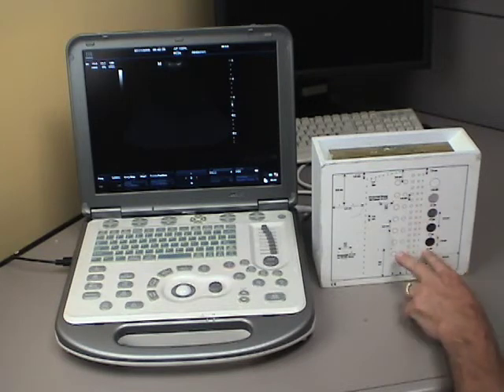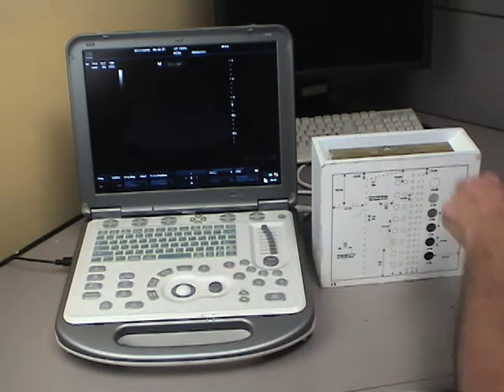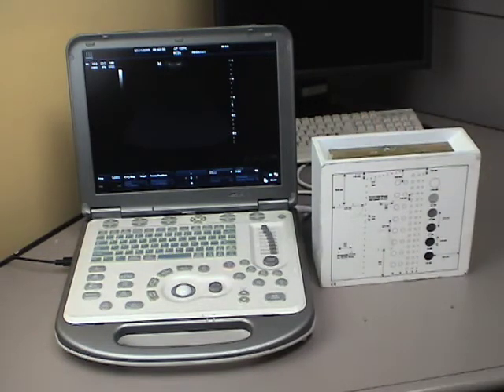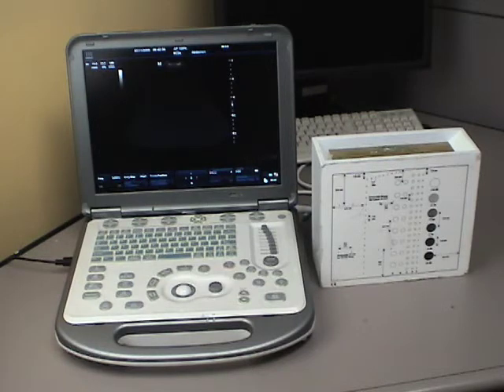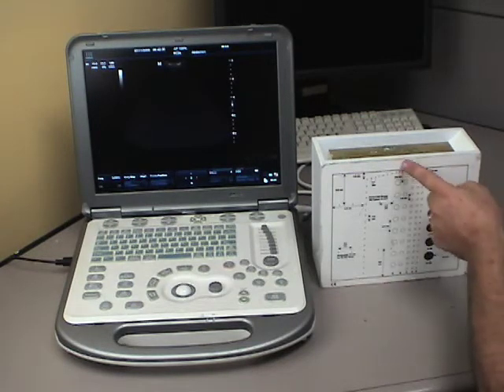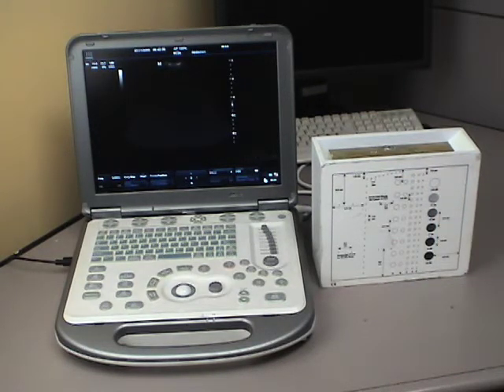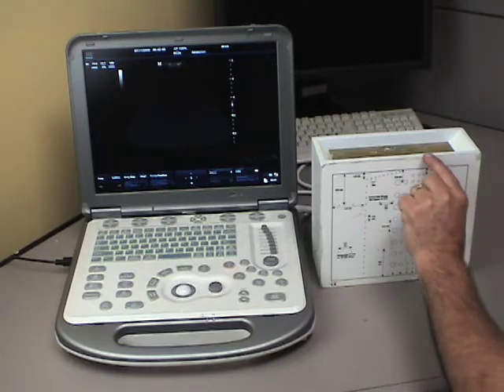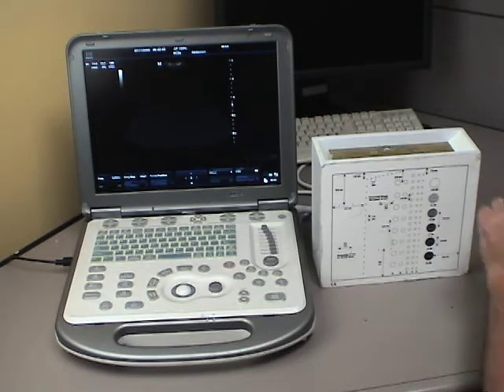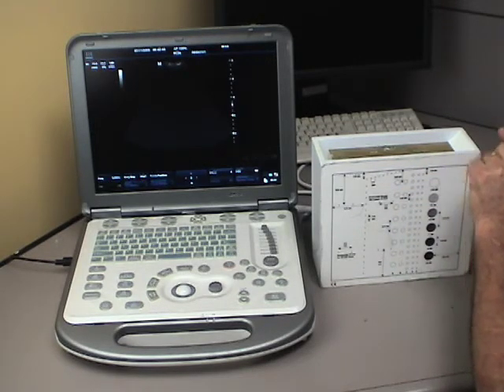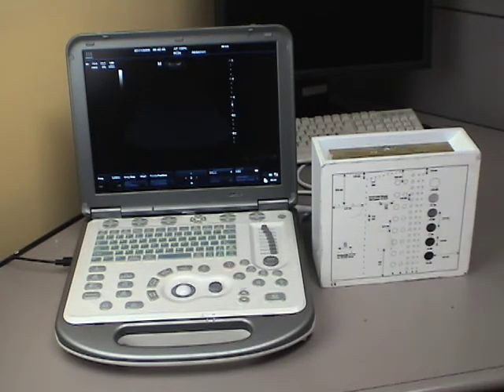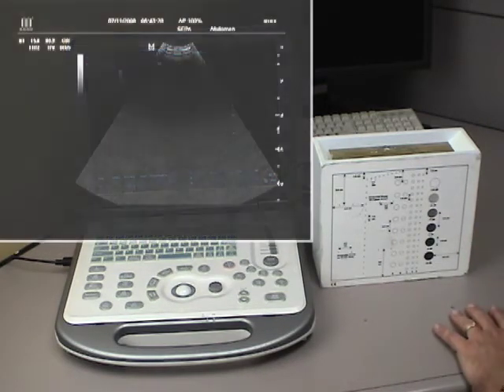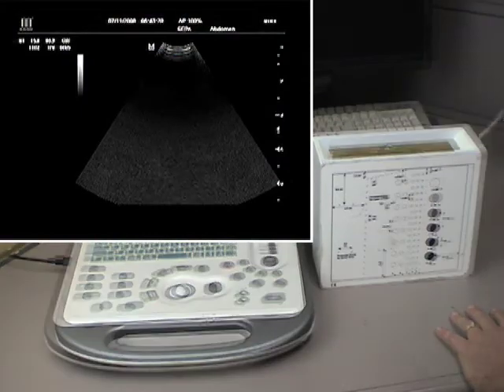And that's what each one of these are for. You also have another set that shows you near the near field, so you can take a look at a high-frequency probe and see how well it's seeing in the near field, and if it can see down to the one-centimeter marker, and in a lot of cases with a transducer that's somewhat obliterated you'd use something like a standoff pad to see better there. That's what this is for, to evaluate your image and document it. And now let me show you what each one of these look like on the monitor.